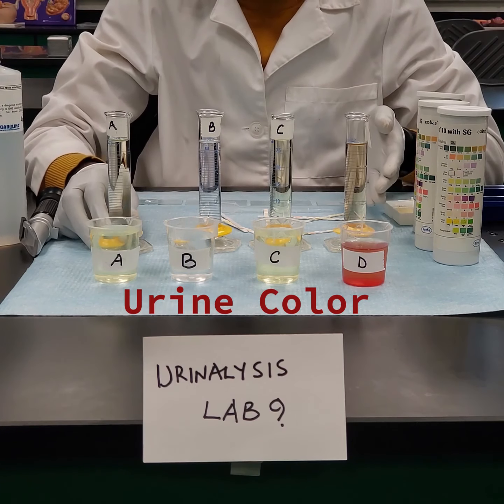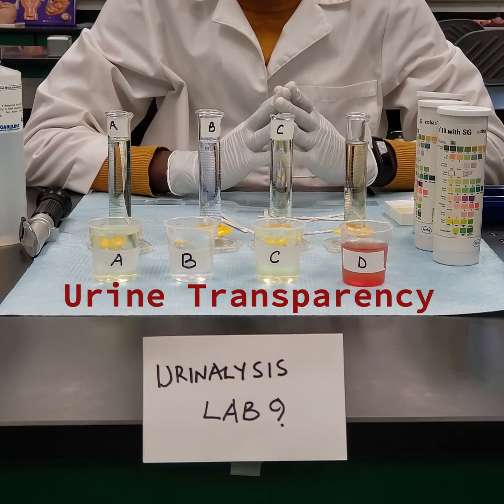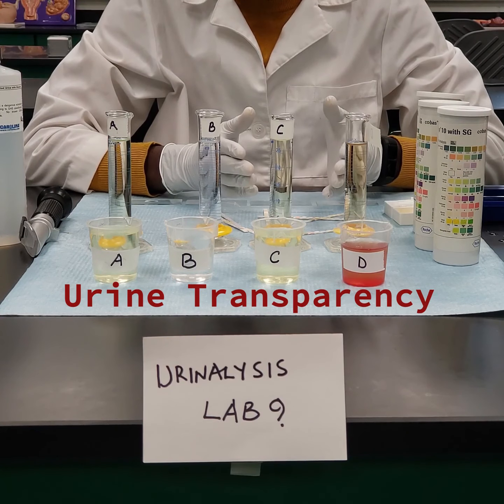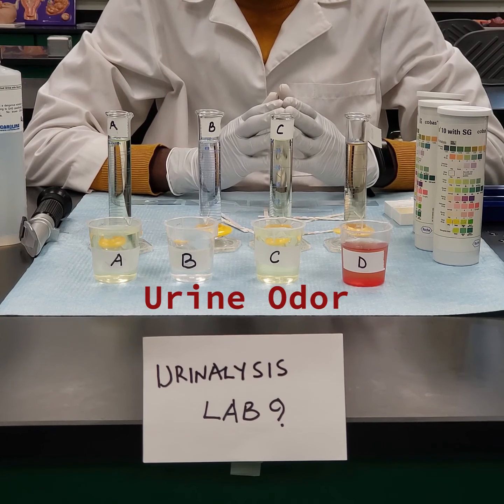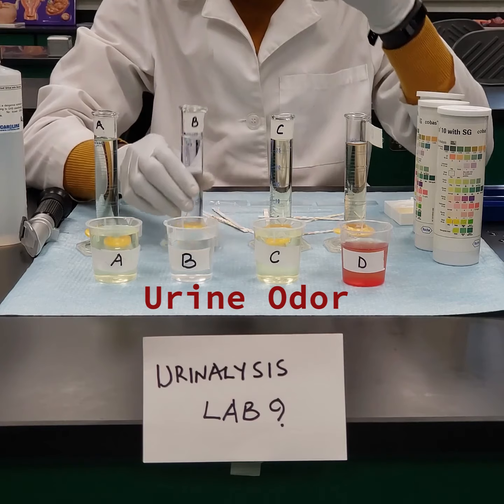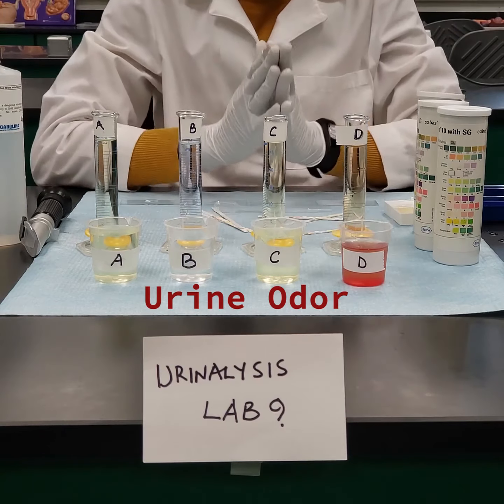Then the second part is to look at the transparency of the urine samples. Look at the transparency and see what color you want to give. Is it cloudy? Is it transparent? And then you record that in your results. Then the third part of this is to look at the odor of the urine. You take each sample, you smell them to say what kind of smell you can get from it, and then after you're done with that, you record your findings also.